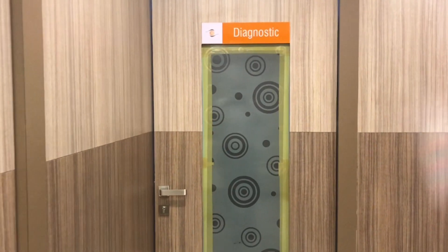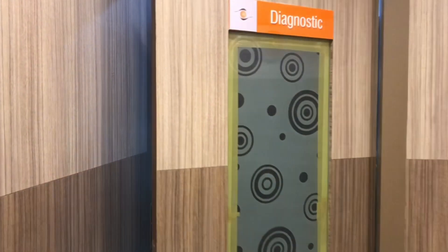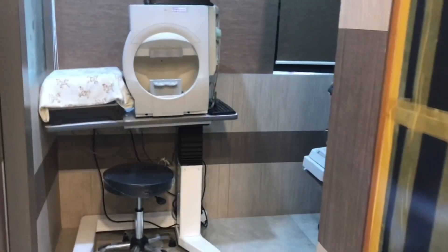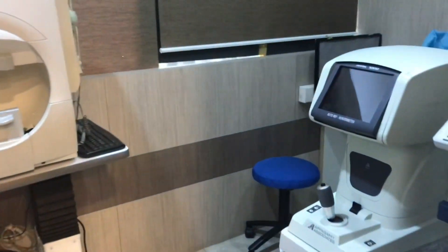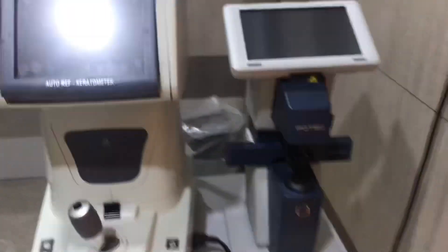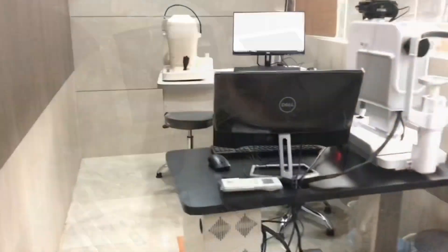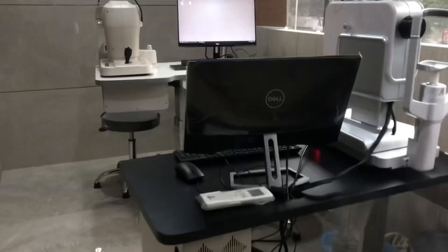Our clinics today are equipped with all the latest technology, and patients expect seeing them. So how to take it to the next level? How to get the X factor?